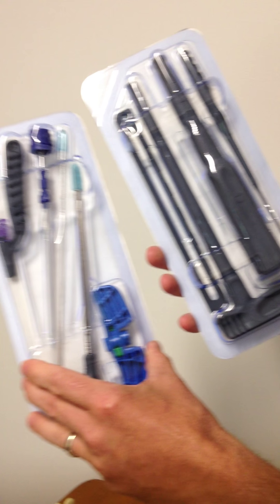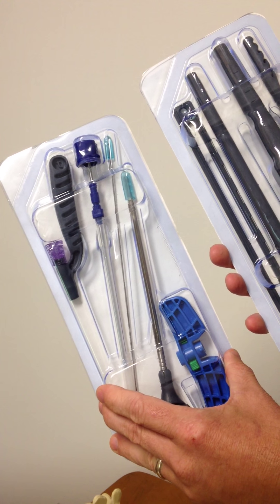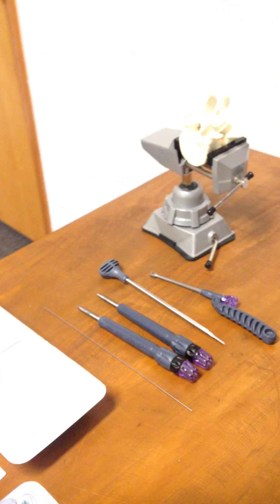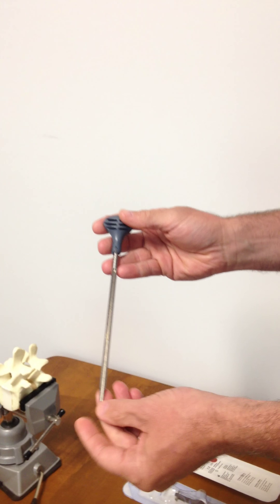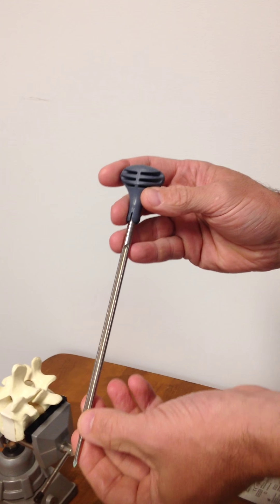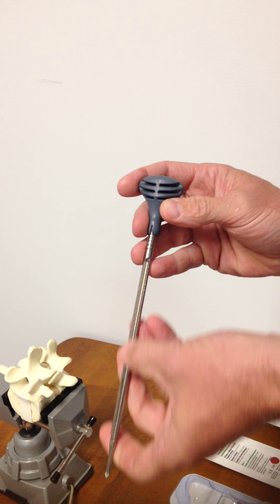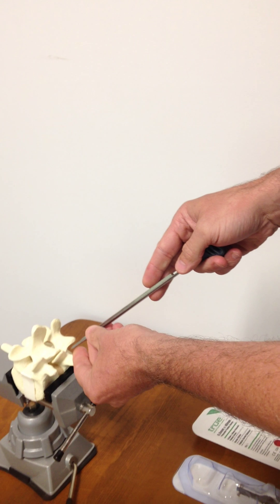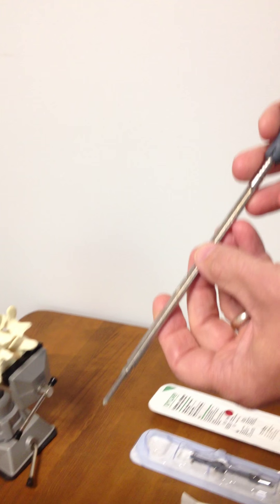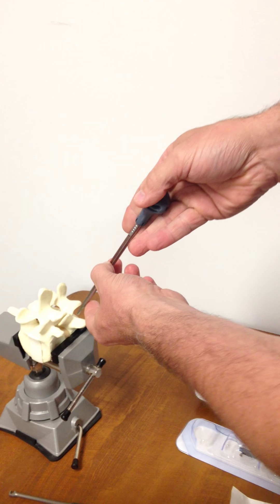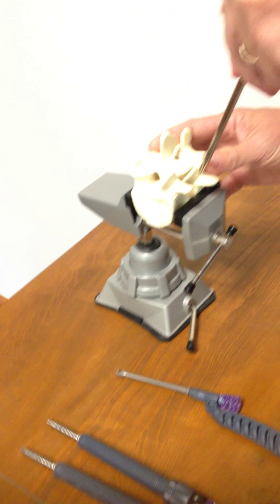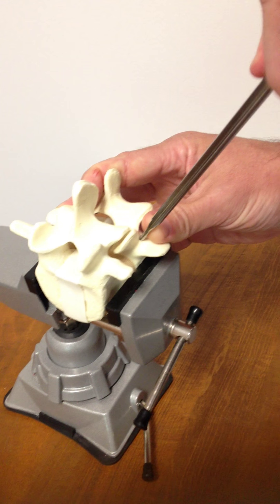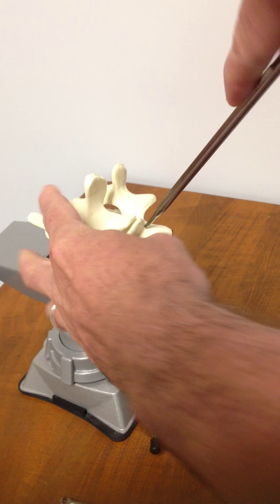And this is our complimentary set for MIS. The workflow for the procedure: we have a unique instrument for our guide wire delivery. This is our pedicle prep instrument. It would be used very similar to a Jamshidi needle. You would do fluoroscopic guidance in order to place this, very similar to what I'm doing here.